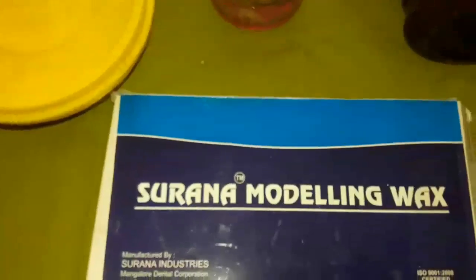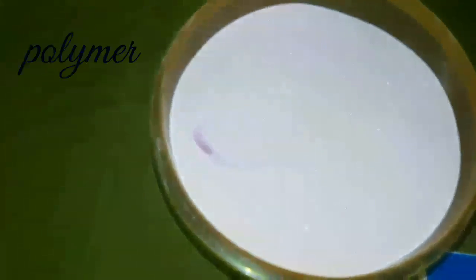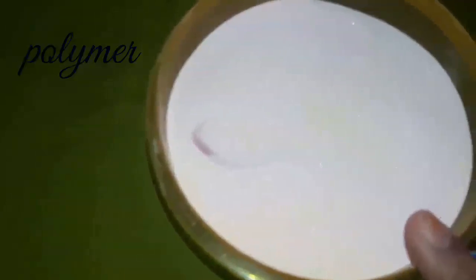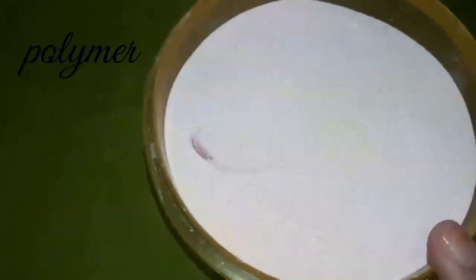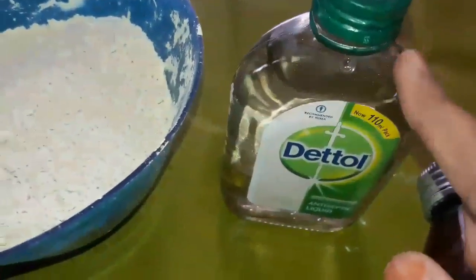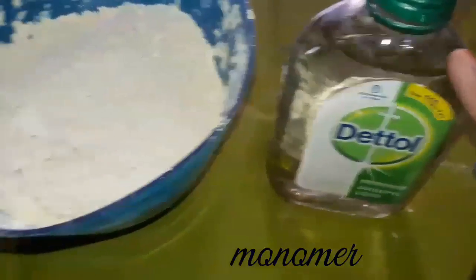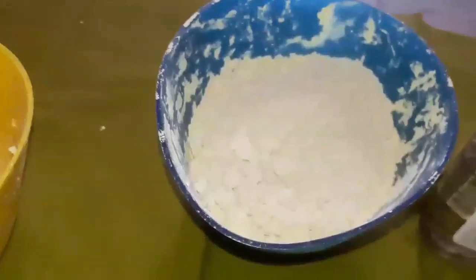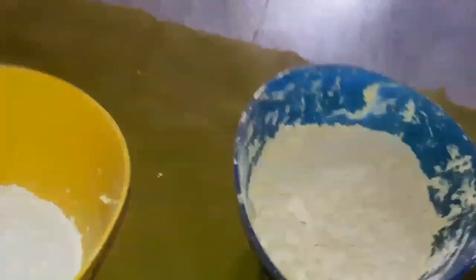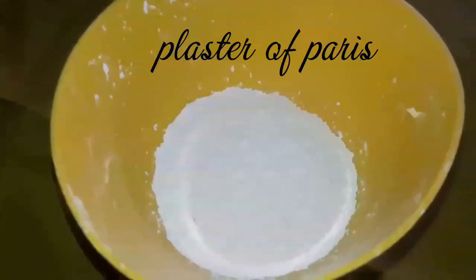This material is called polymer, and this is modeling wax. Coming to alginate and POP, which is called Plaster of Paris, and also monomer.